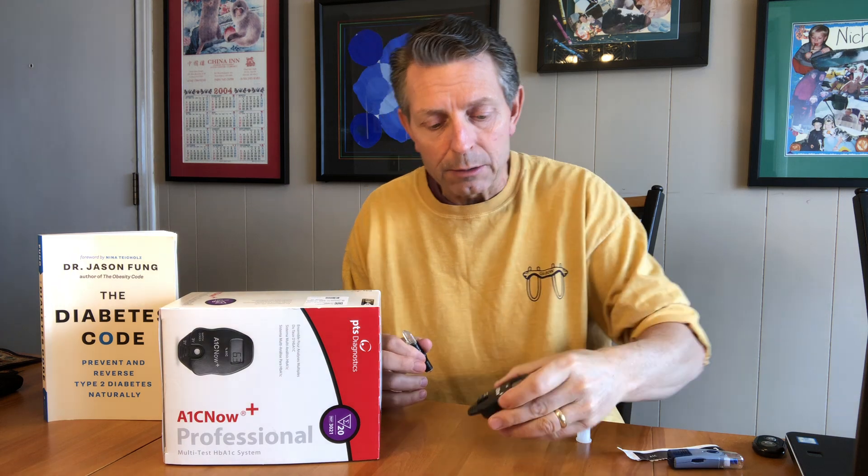In five minutes I'll have an A1C reading. The reading that you saw before was my reading that I took a few minutes prior to doing this demo video, because I wanted to see how to do it and I don't want the video to take five minutes. But in five minutes, I'll have another A1C reading.